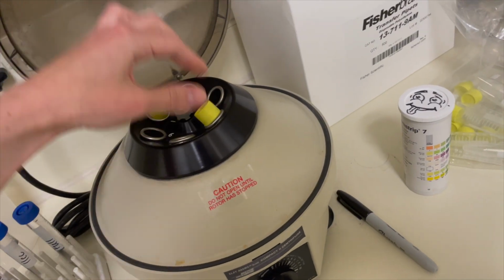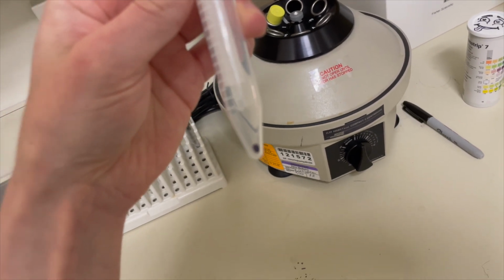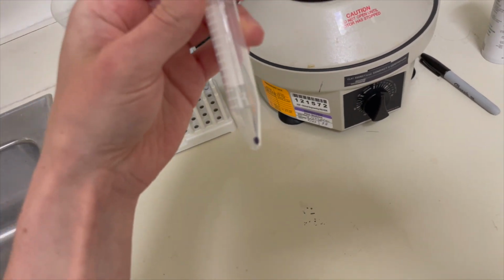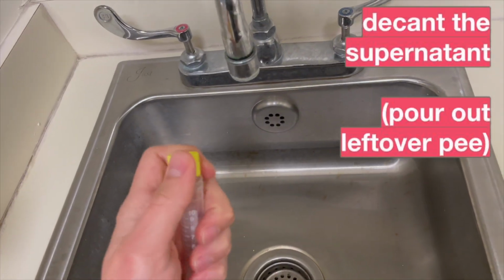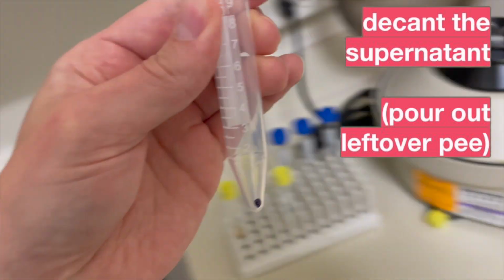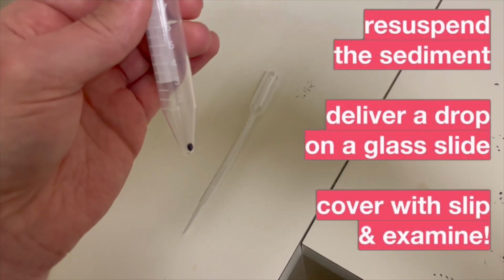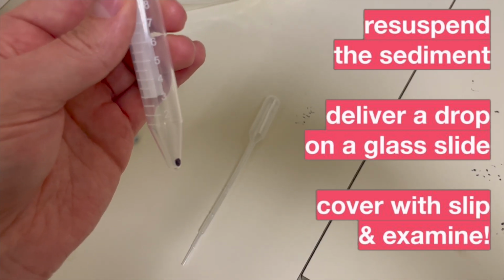And after that, you take a look at the urine, and you should see a little bit of sediment, a pellet that has come out, and I've used that Sharpie dot. Let's see if we can get focus on it to approximate the size of what a pellet might look like. So you're going to go into the sink and dump your supernatant out, and then you usually have a drop or two of urine that remains. You come over here using this pipette, and you gently resuspend the pellet such that you get a nice even distribution, without disrupting any of the casts that might be present.